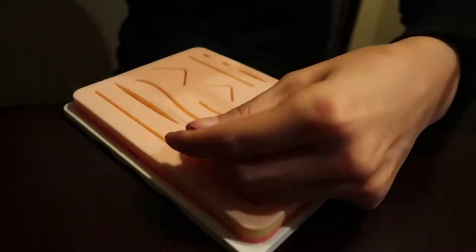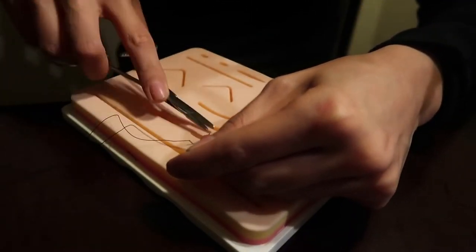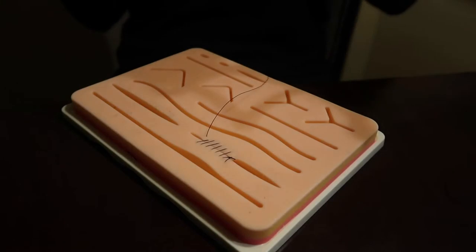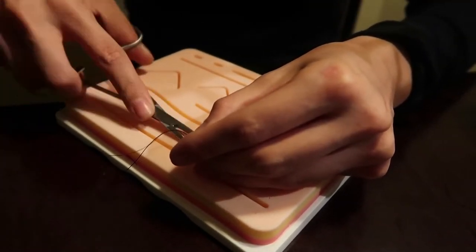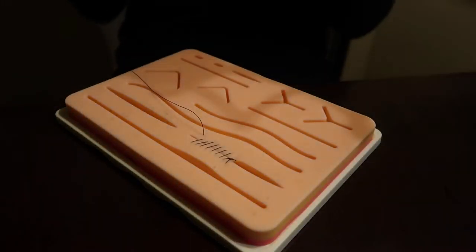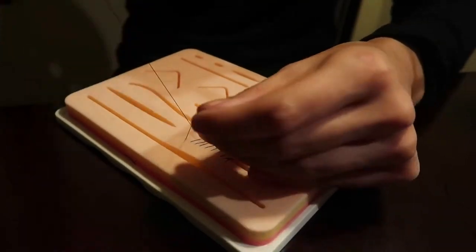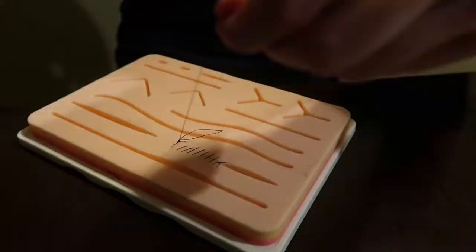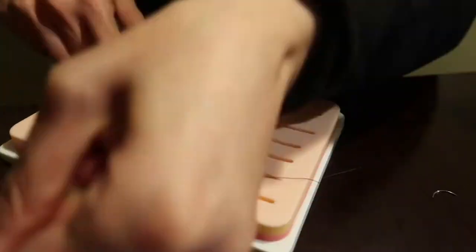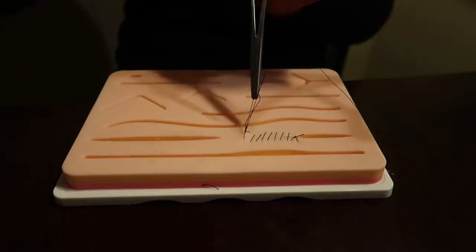Because it is hands-on, it's essential that you have some basic hands-on skills like being able to suture. For instance, this is a basic running suture that many physicians have to be able to do. I think having a kit like this to practice your skills is vital to anybody interested in improving basic suture skills.